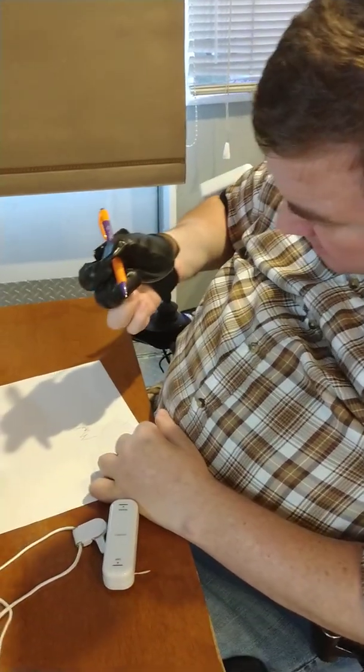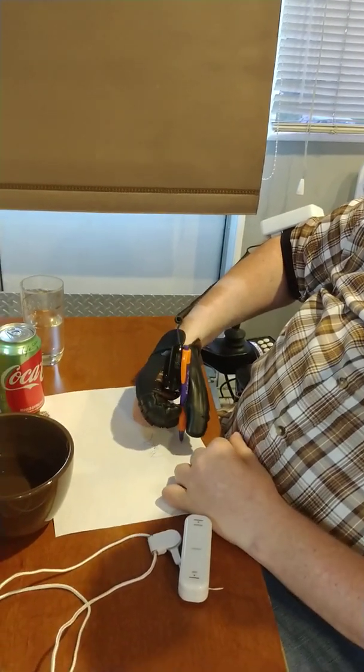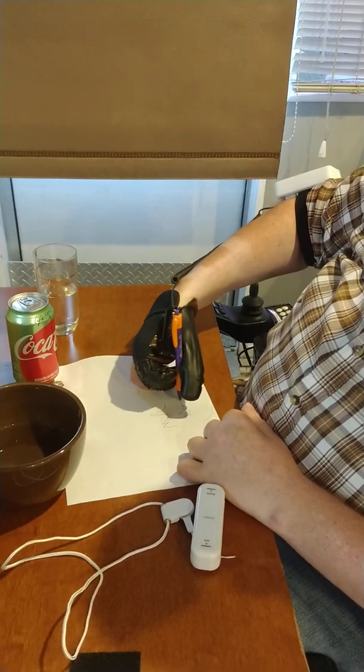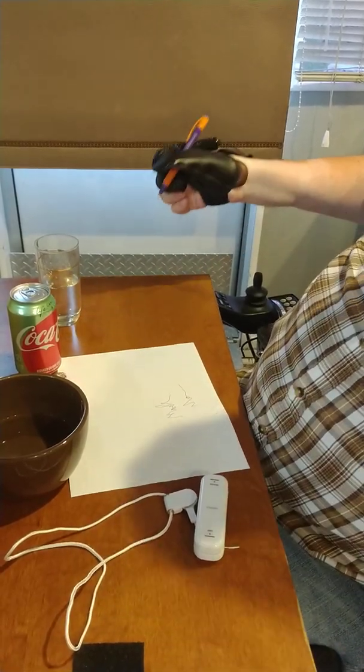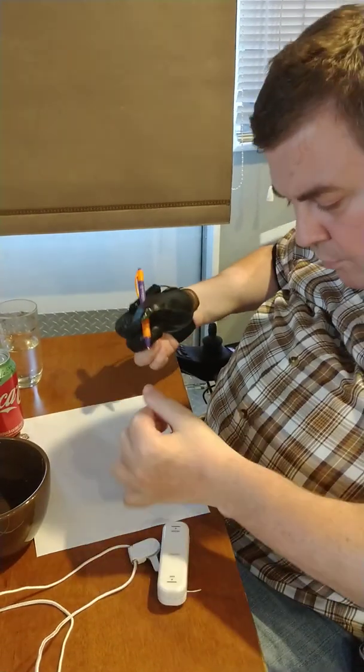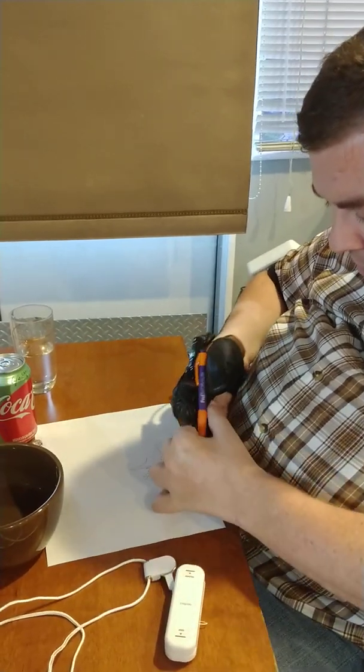Well, now I've kind of got it squeezed a little bit between my two fingers, but again I can't see what I'm writing. So a little room for improvement. Let's compare this against the power grip in a different type of grasp situation.